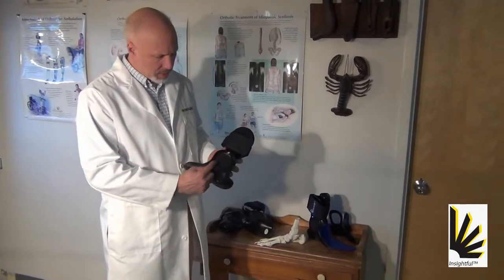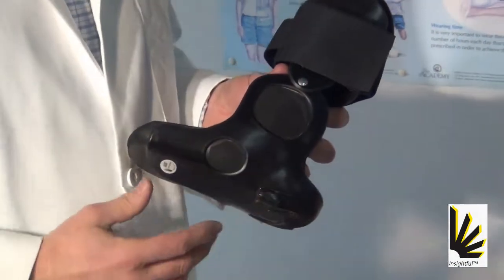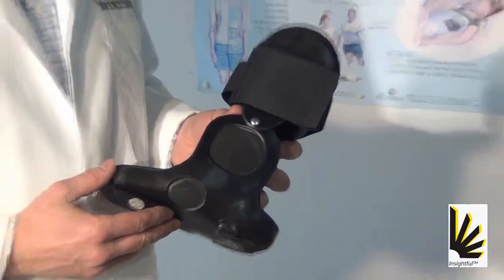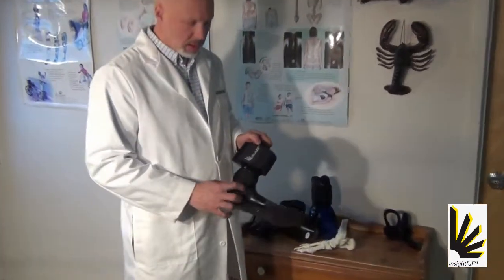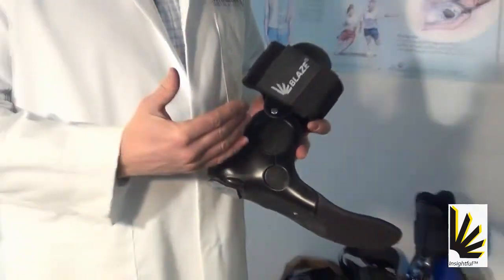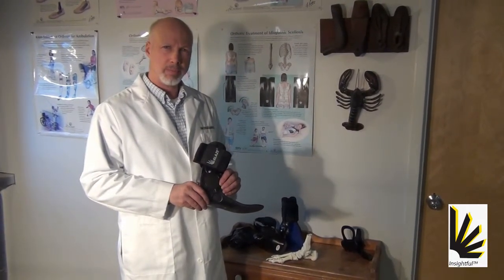Here what happens is sometimes when that becomes very narrow, that is, the windows become too close together, this band creates a high pressure area which is hard for the patient to tolerate. So in order to rectify that, we occasionally use the split. And what that cut basically does is create some yield, so when the patients are in moments of high impact, they're not experiencing that intolerable pressure band.